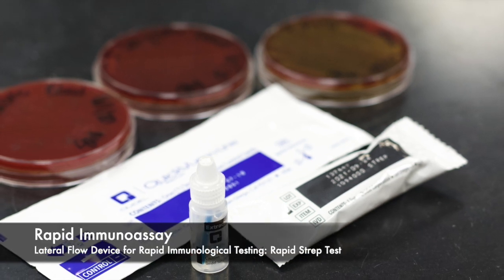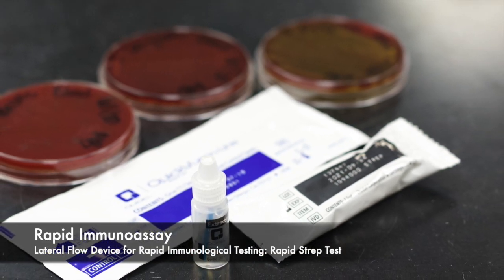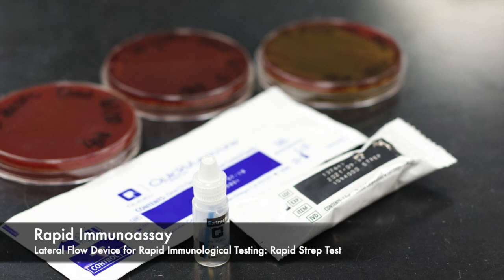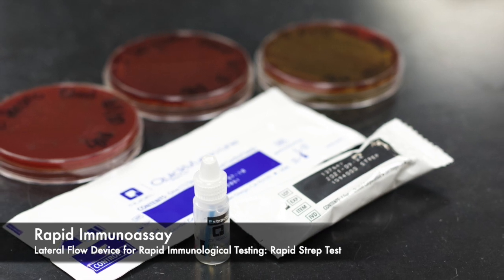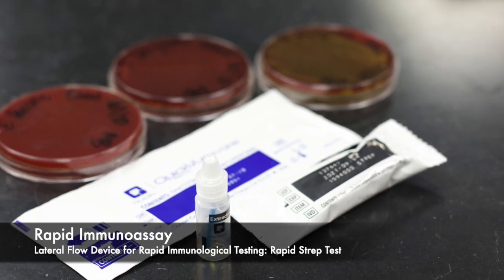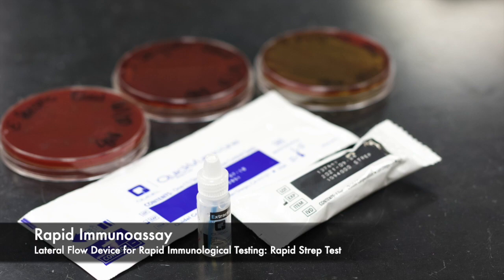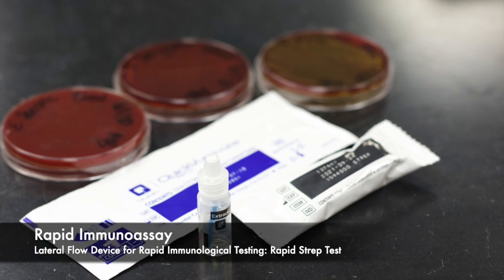Hello and welcome to our video on completing the rapid immunoassay, a lateral flow device that's used for the rapid detection of beta hemolytic streptococcus.